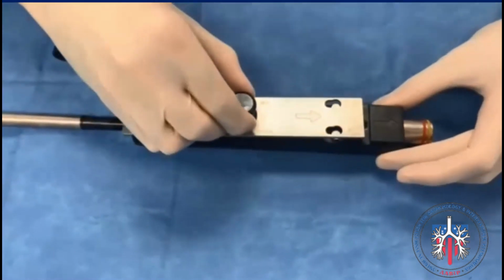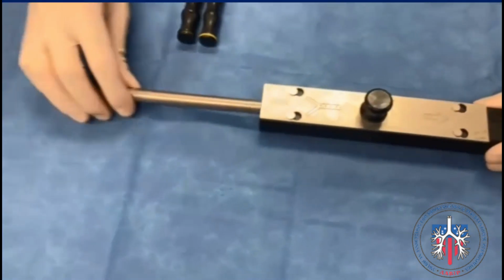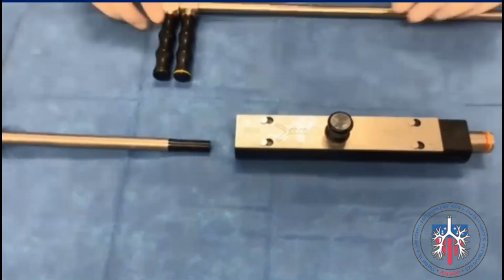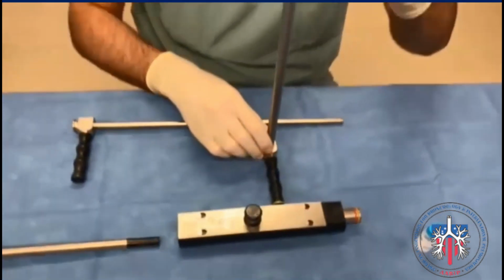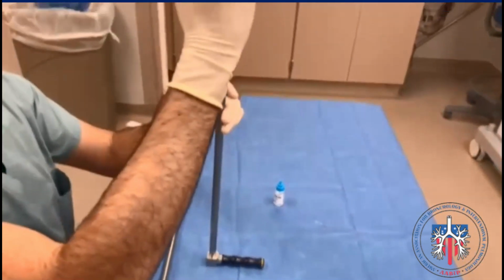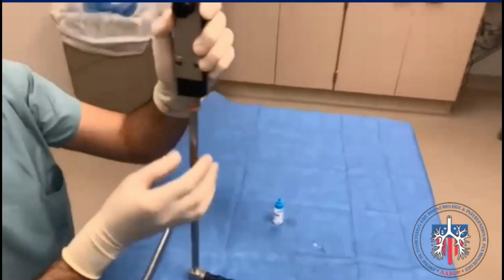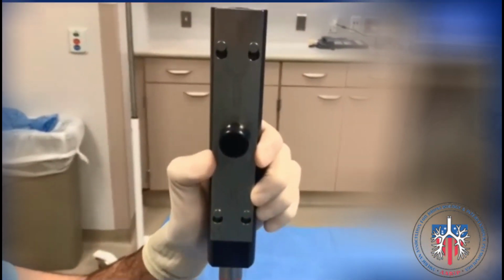Place the lid on the stent funnel and slide into locked position. Please note that the lid only locks in one way. After lubricating the stent introducer, place the stent introducer tube onto a flat surface so that the opening of the tube faces up. Insert the metal end of the stent funnel into the stent introducer tube.